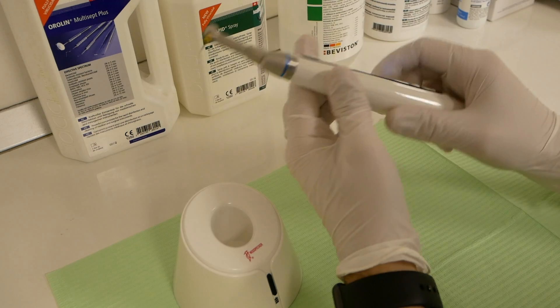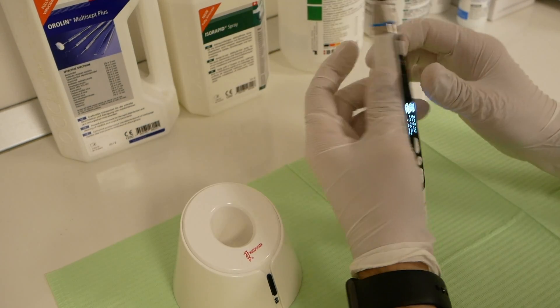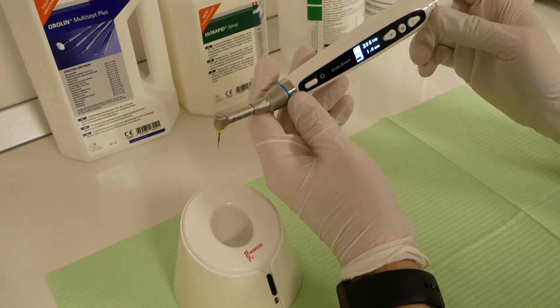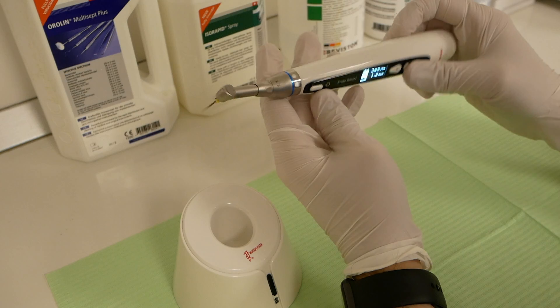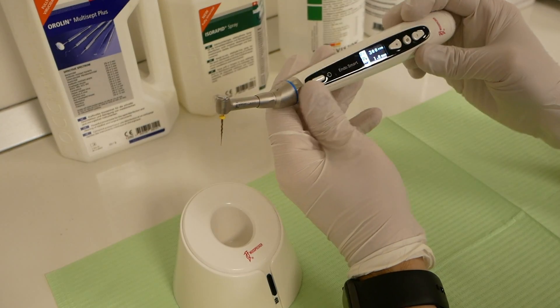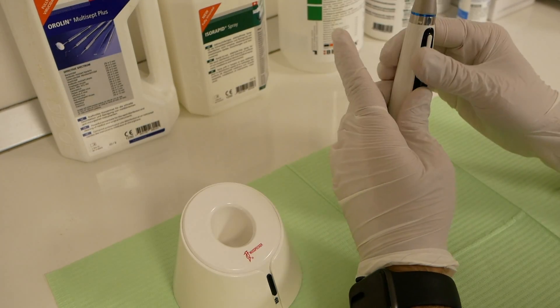This is the Woodpecker Endosmart Endodontic Motor. Quite happy with it. Been using it for about a year or so, and it has performed very well. Very happy with the purchase.